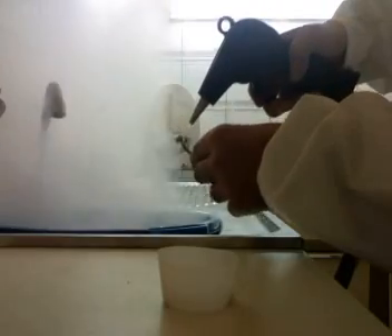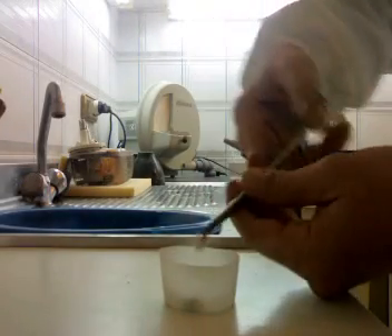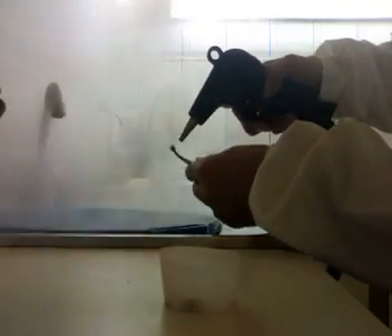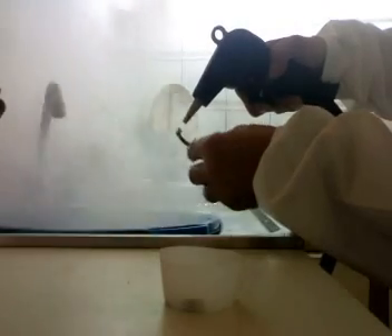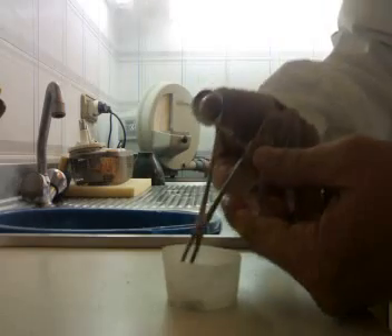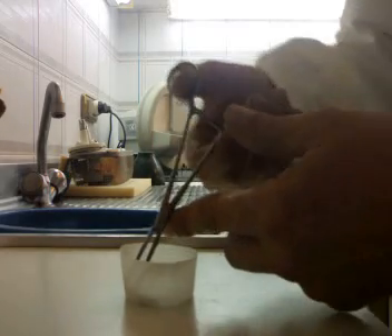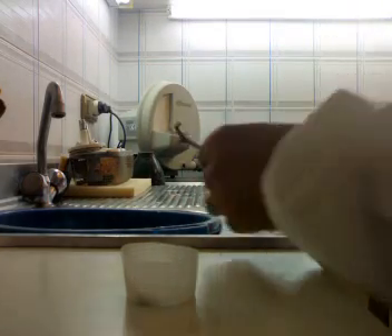I will do this with the other two crowns as well. This is exactly each step-by-step of what is done to have a crown ready. Some people like to ultrasonic the job, others wash them with water. I notice that I have a very good result when I use steam. Even this is a little bit more expensive, because keeping your steam on costs electricity, and your steamer does need maintenance — it has its cost.